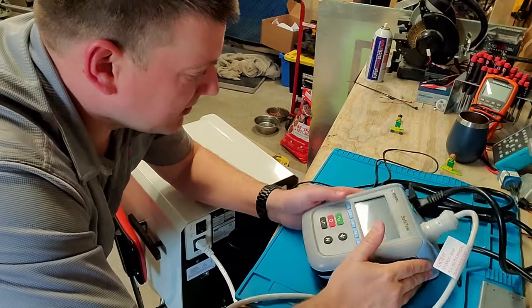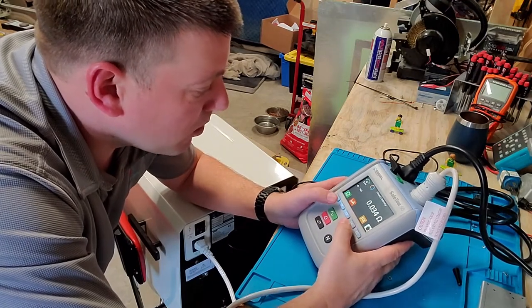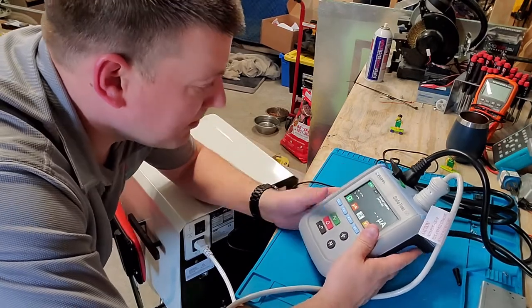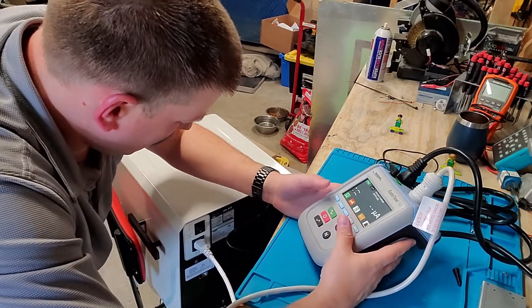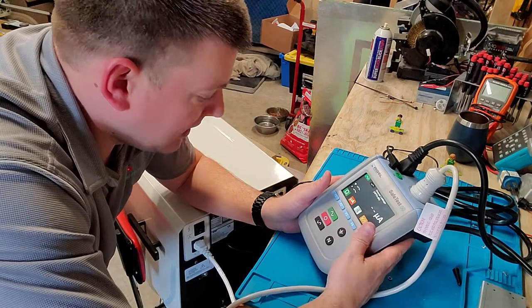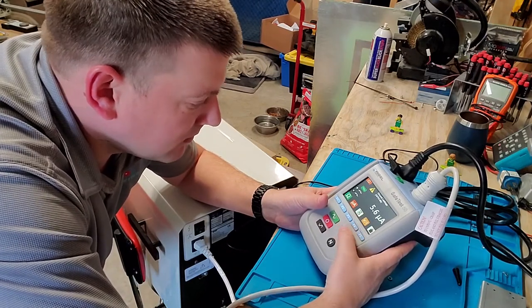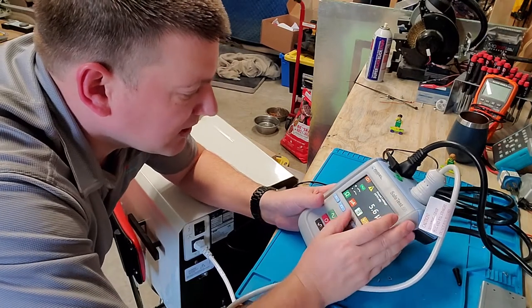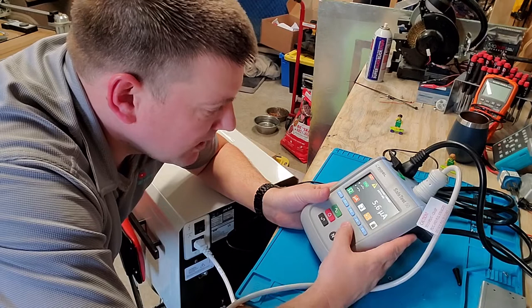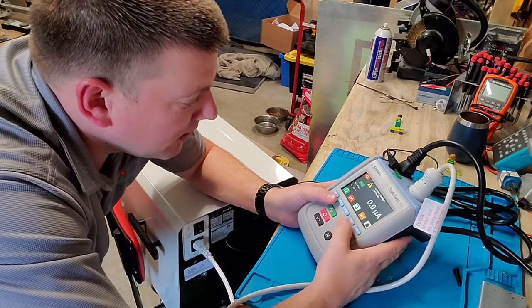Let's run through it. Let's see how fast I can do electrical safety. There we are, 0.034 of an ohm. As soon as I verified the integrity of my cable, I'm going to pop over here to microamps. My equipment is off, I'm going to hit start test. It's going to throw voltage to the chassis here on the mains. I've got 5.6 microamps. Oh, I'm on ground leakage, my bad guys. Chassis leakage. I'm going to open the ground, 5.6 microamps. That's exactly where I need to be. Now I'm going to turn the device on.